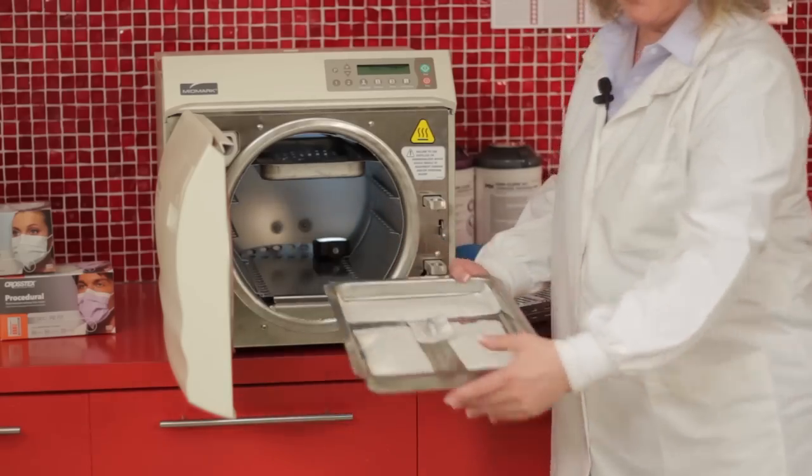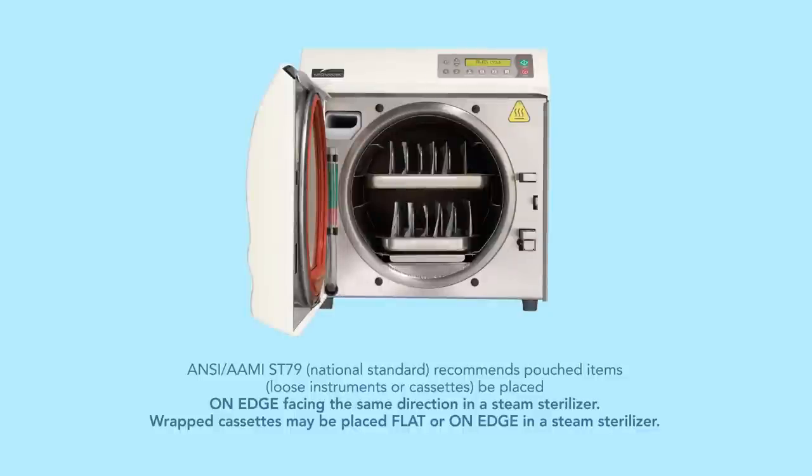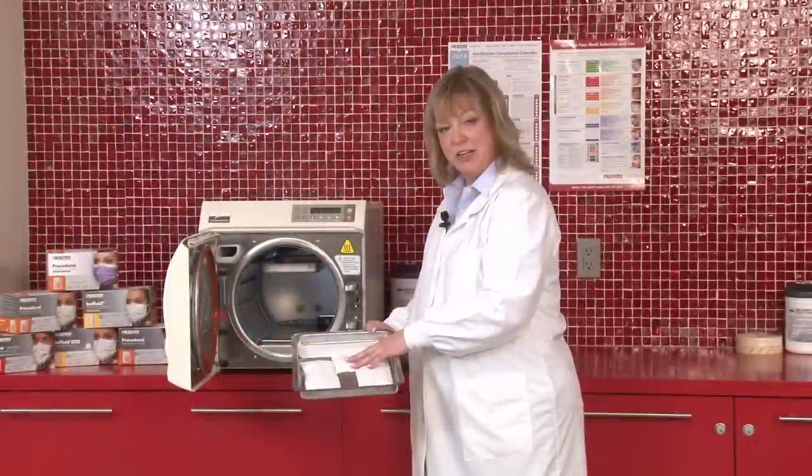Again, you'll note that we're not placing it over any of the instruments. We're placing it in a single layer. We're going to place it paper-side up because this is a gravity displacement sterilizer.